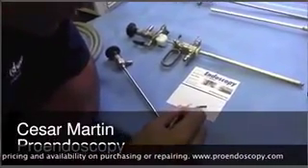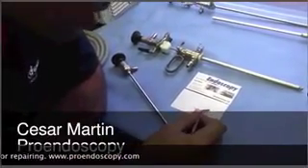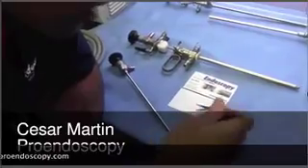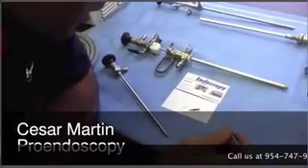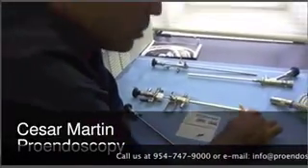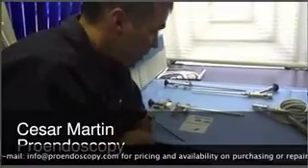The fluid goes underneath that window and gets into the objective lens here, and then into your rod lens system as well. This could happen with a hysteroscope due to the laser, and an arthroscope due to the shaver.